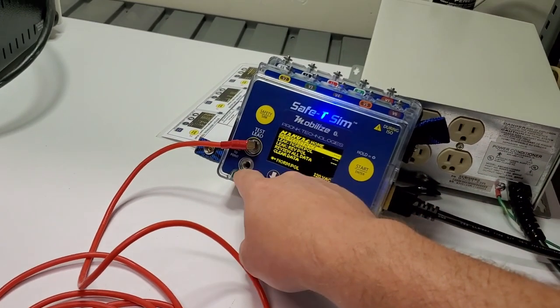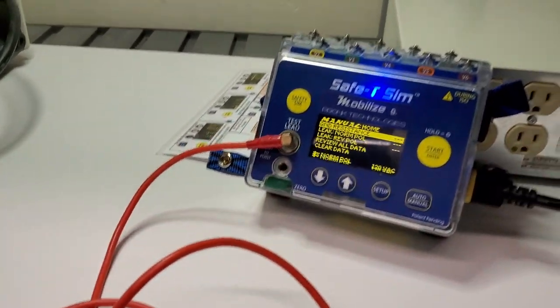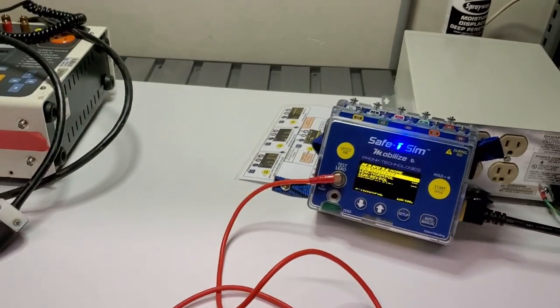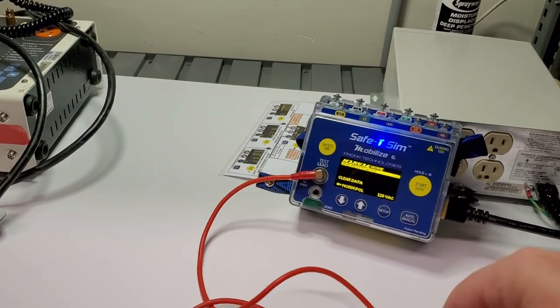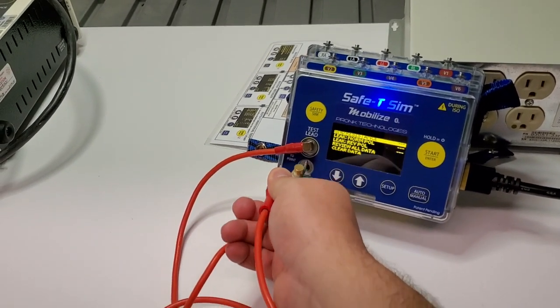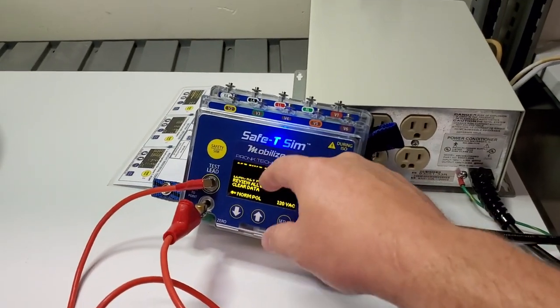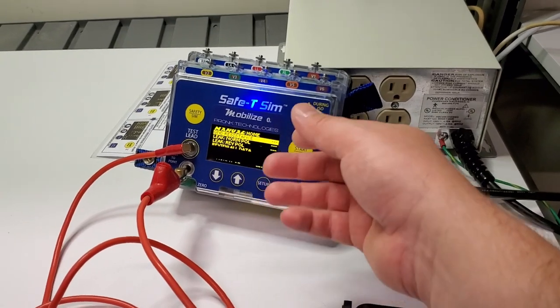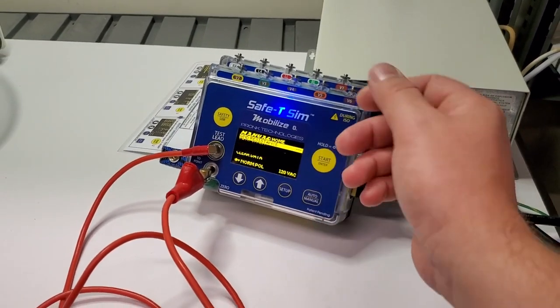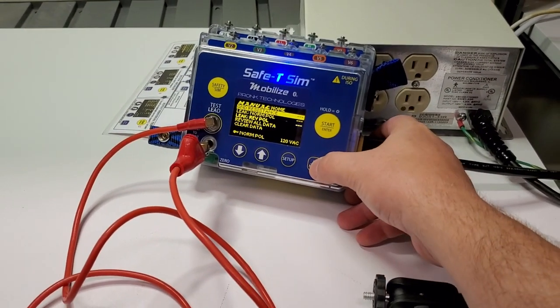The two points on the front are the test lead and point-to-point or calibration port. The first thing you have to be aware of with the Safety Sim is that every 30 days you have to calibrate the unit. You stick the calibration lead in there or clip it on, and it will show a screen asking if you'd like to calibrate. About 30 seconds later it clears out. Let's go ahead and do that manually.